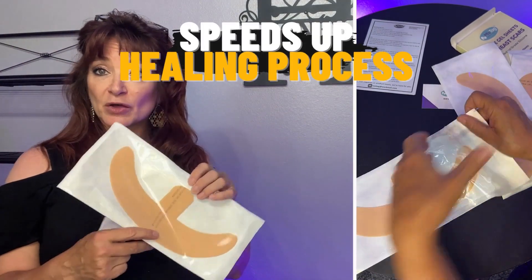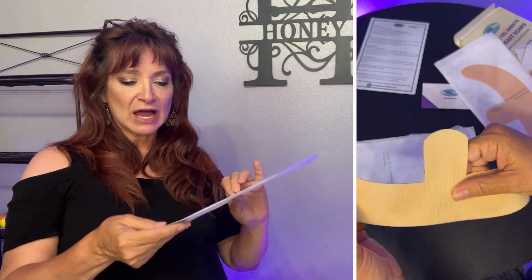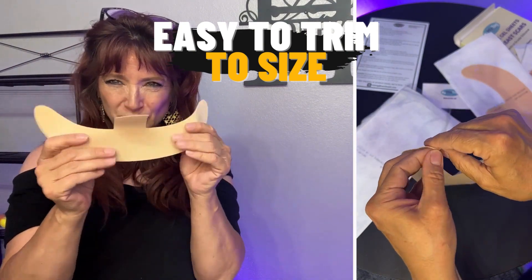You can see how the product is sticky. I'd like to thank Miztag for sending these to me to review — I really do appreciate it. When I open this up, you can see that it's a very flexible feeling and it feels real solid and real secure.